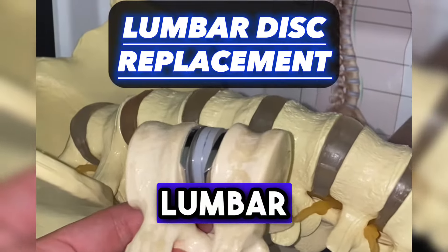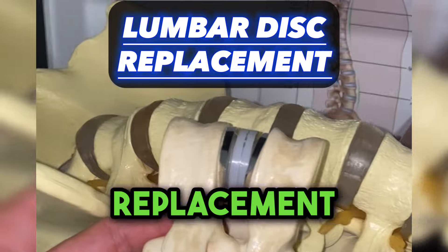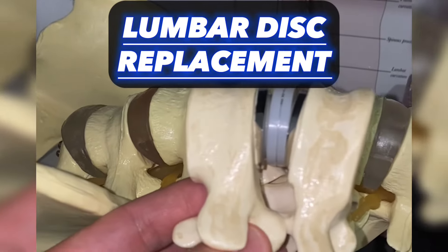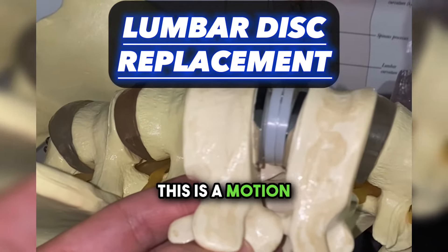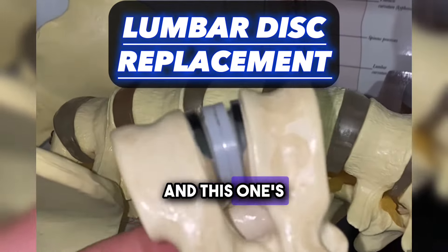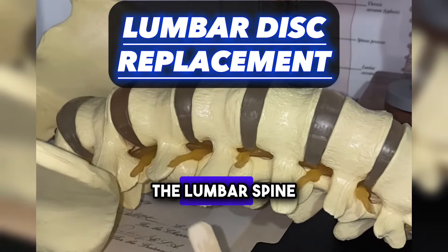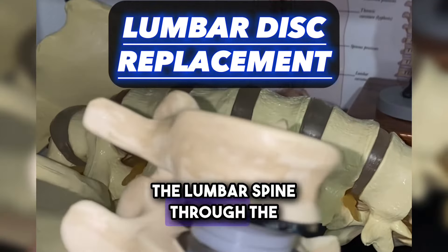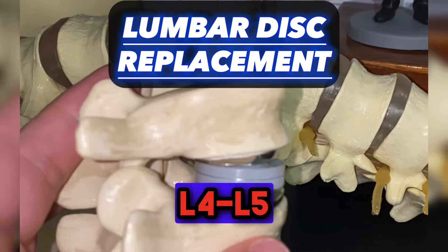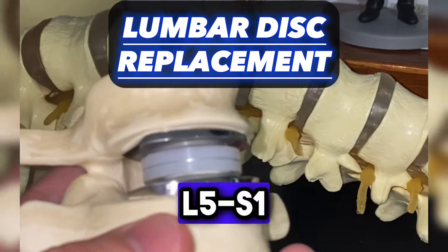This next one is a lumbar disc replacement, also known as an LDR. This is a motion-sparing device, and it's inserted in the lumbar spine through the abdomen, usually at L4-L5 or L5-S1.